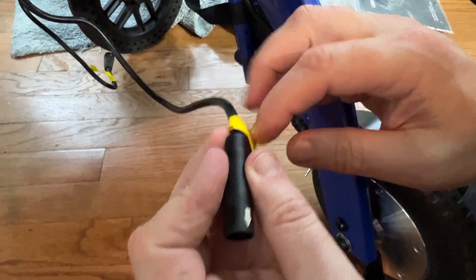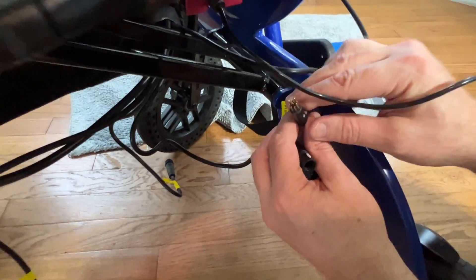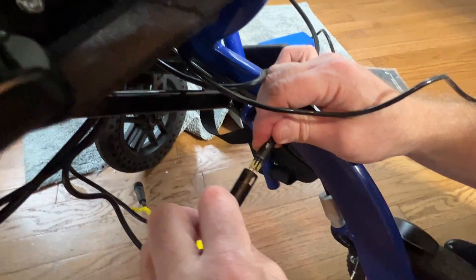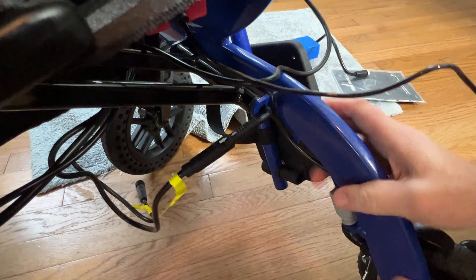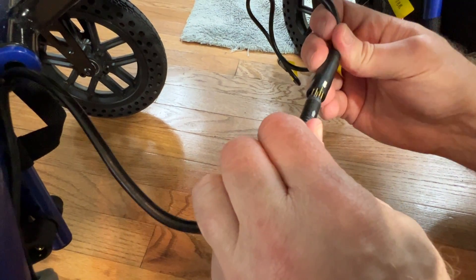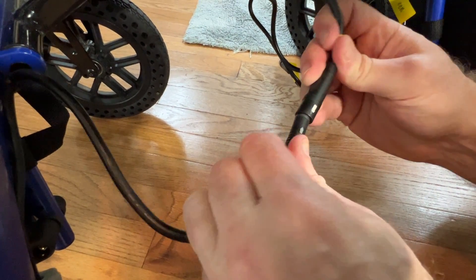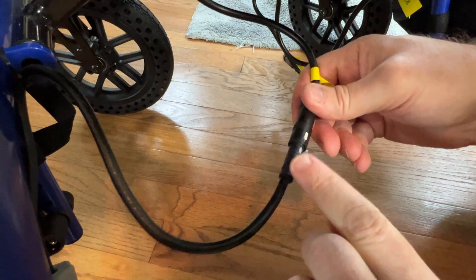What is this? This is the right motor — and right here, that's the right motor as well. So we basically see that we've got pins that match up. I want to match those arrows up and connect the right motor now. And there's the same thing for the left motor, which is really nice — I can go ahead and deconstruct and reconstruct very simply. I don't want to force anything and I always want to get those arrows together.